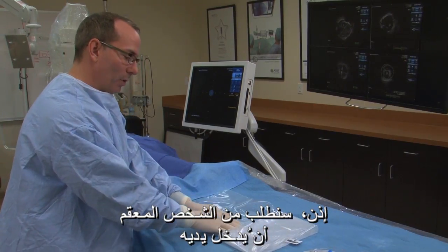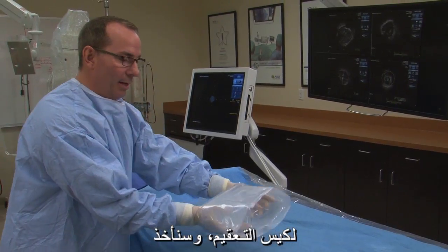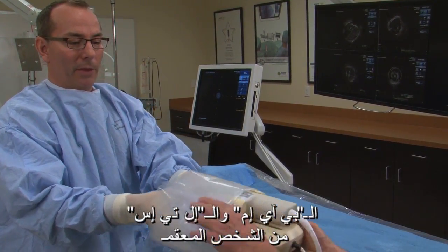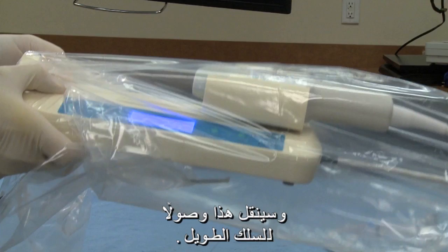We are going to ask the sterile person to slide their hands into the sterile bag. We will accept the PIM and LTS from the sterile person, and they will translate this all the way back along the cable.